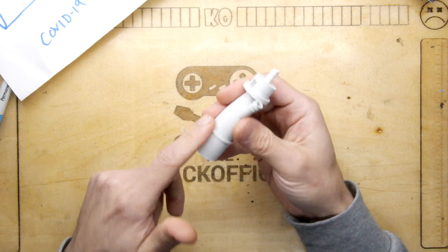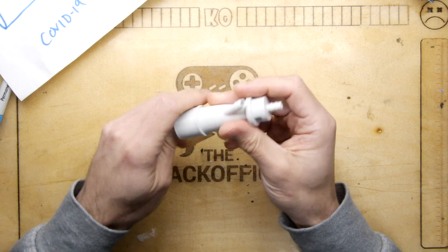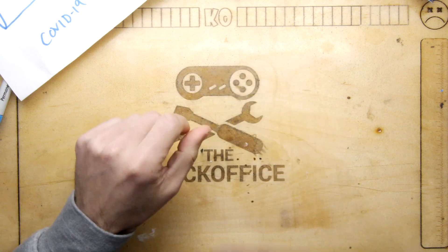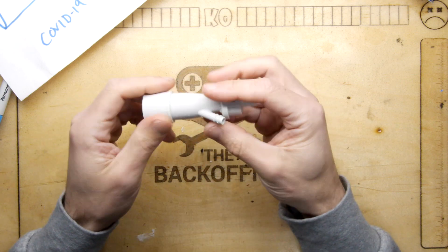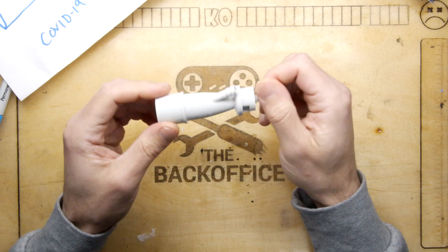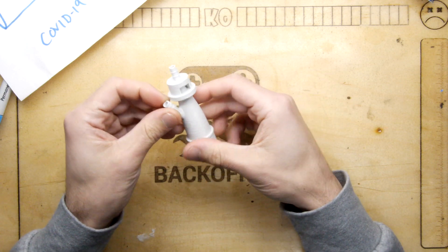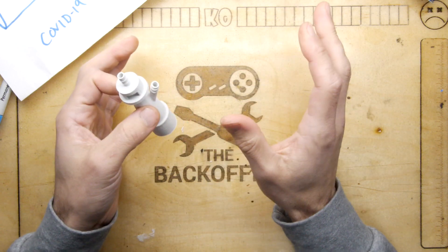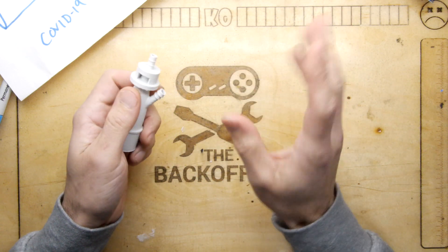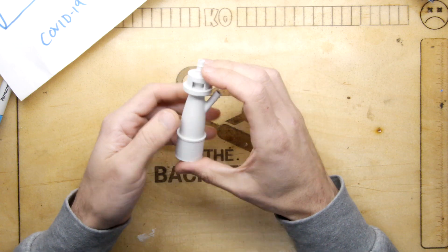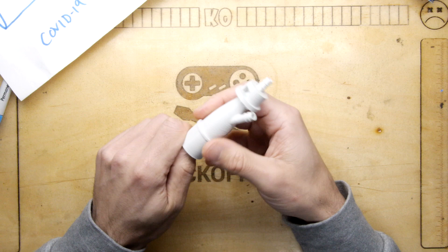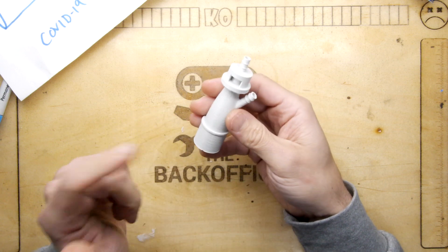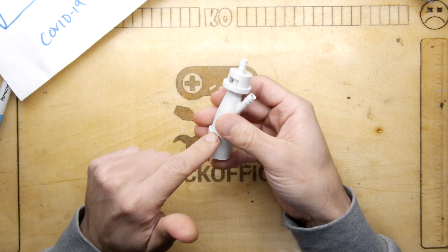If there's ever a call for help where people actually need these, you could just send them on. Something I was thinking about: if you are making them, don't huff into them because you could be infected. I think they're going to be hard to sterilize, but PLA doesn't harm you - it's known not to harm people.